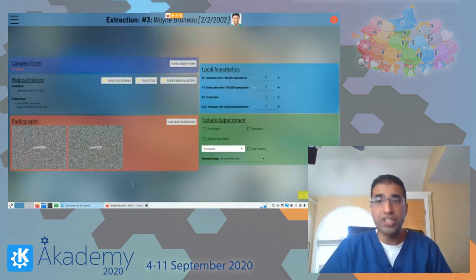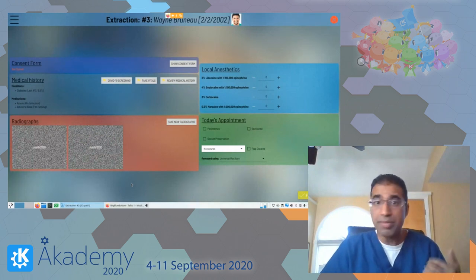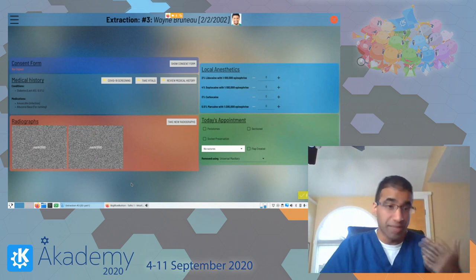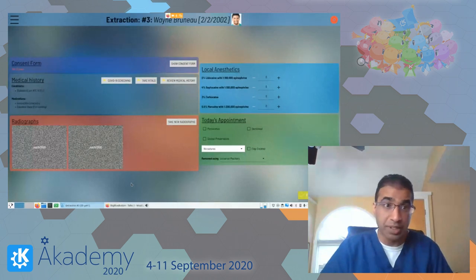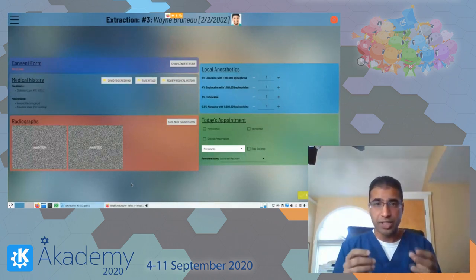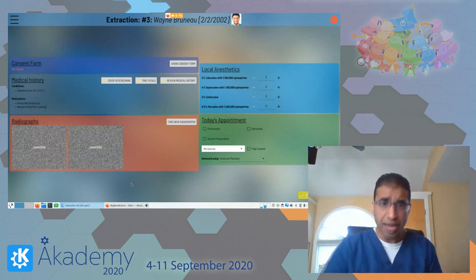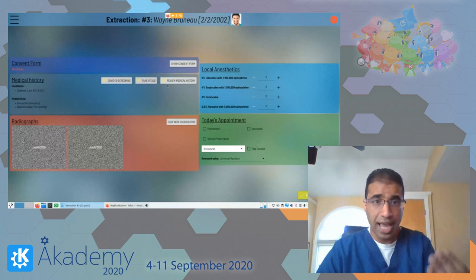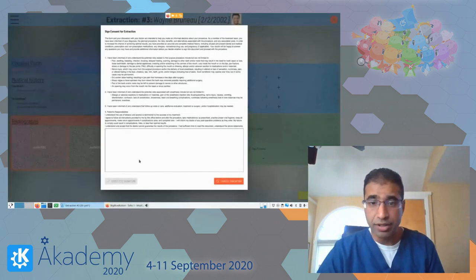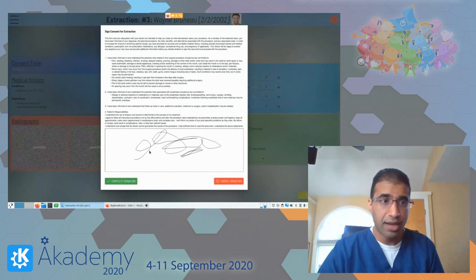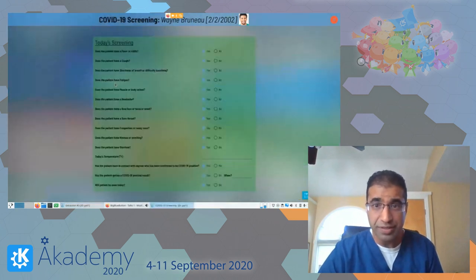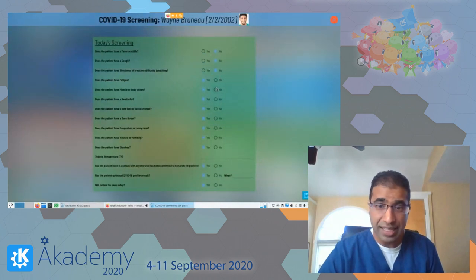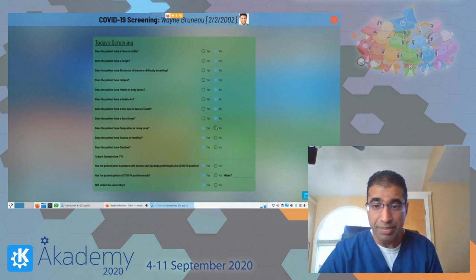As a dentist you go patient to patient really fast and can't afford mistakes — any mistake is not acceptable. Here's a use case where you're about to do an extraction. Before extracting, you want the patient to consent, so you have them sign for consent using their own finger. Once signed, there's a new feature I recently added for COVID-19: you should probably screen your patients before treating them — the last thing you want is an outbreak because you treated an infected patient.